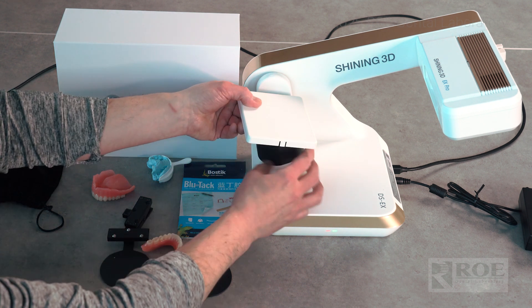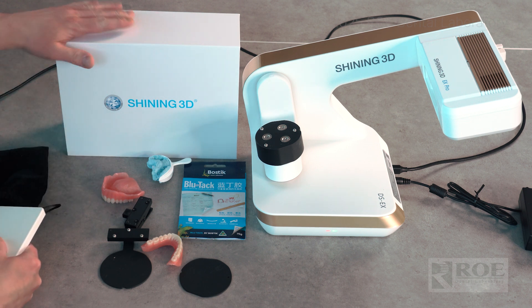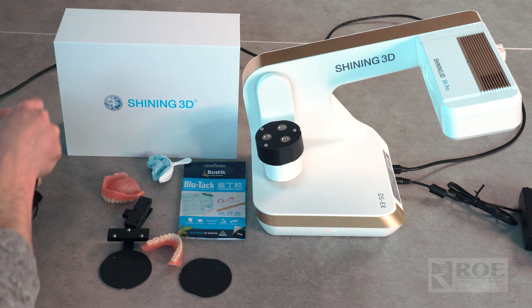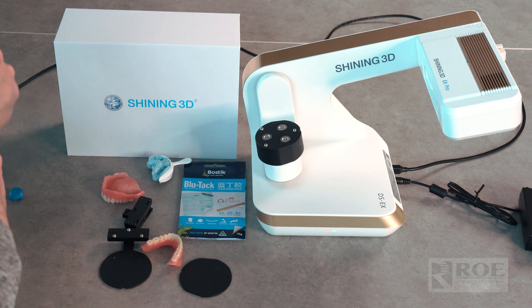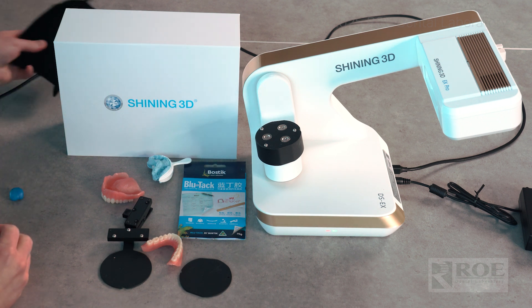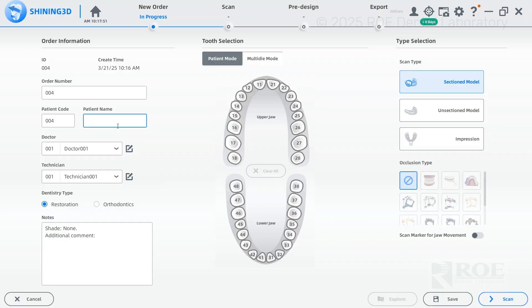Remove the calibration device from the table, keep the lifter up, and put it back in the felt bag that comes in the box so we don't damage it. Make sure it's tucked away nicely in the box. We're done with calibration until we move the scanner again.